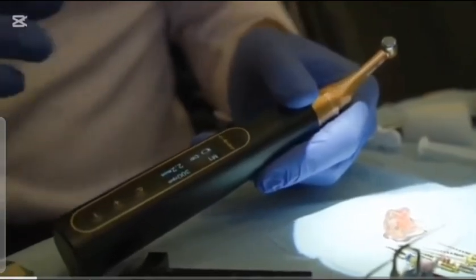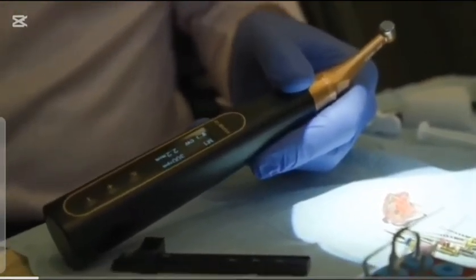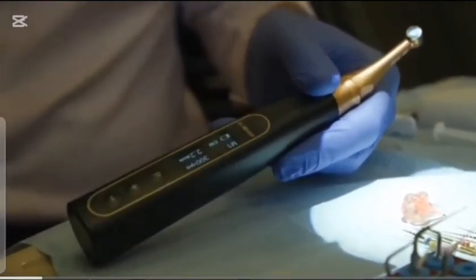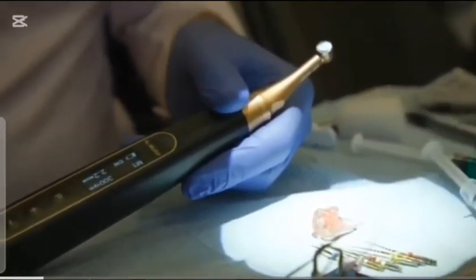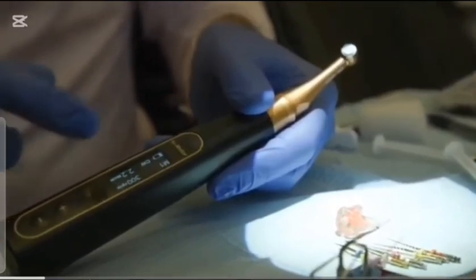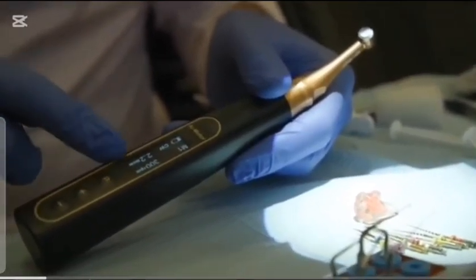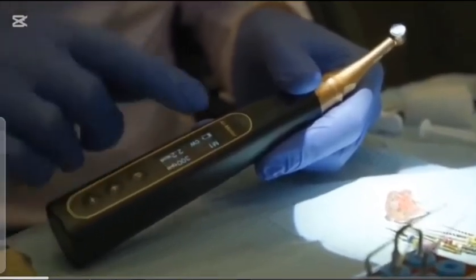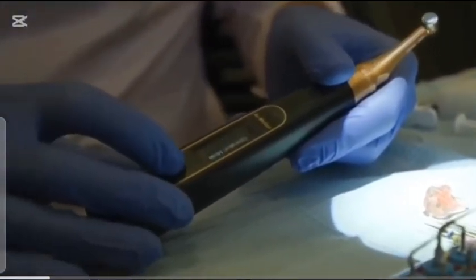So for the ToothSaver files, these files can be used in either rotation or reciprocation. And I'm going to show you the kind of pros and cons of using them each way. So first of all, the settings are 300 RPM. So let me show you how you do that. So you go on to any of the memory programs. So let's say M1, you press P.